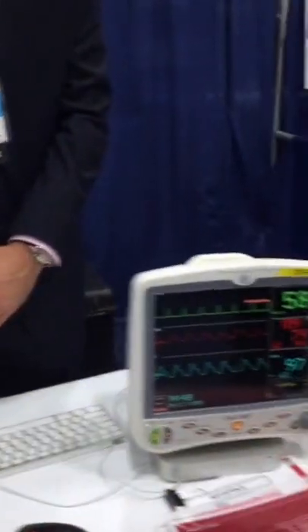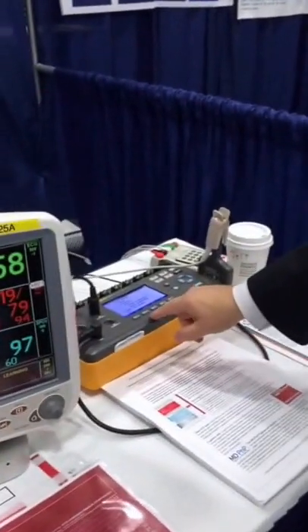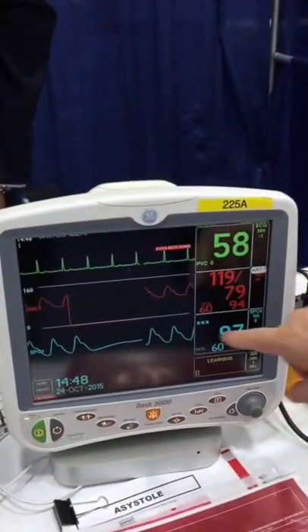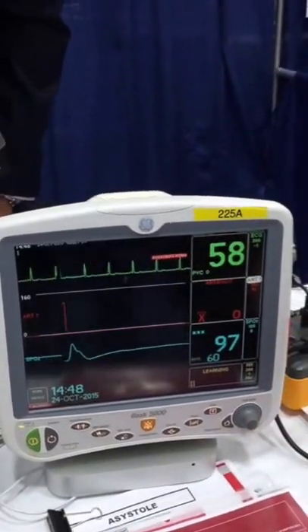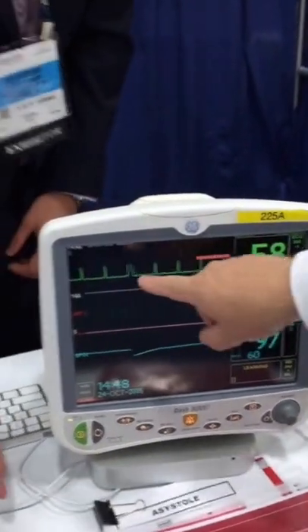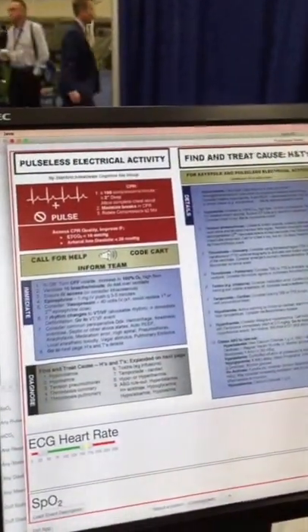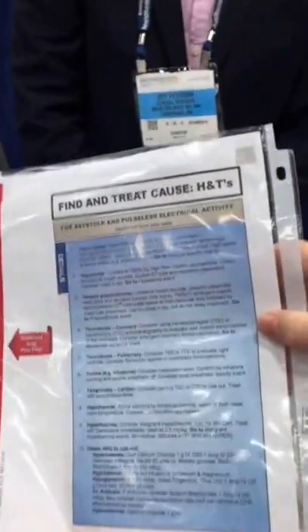So just by pressing a few buttons here we can cause that problem. If you watch the monitor you'll see that we've lost the pulsatility and now we have a low blood pressure. We lost the pulse ox waveform but the ECG continues, and if you look at this screen the app is continuously monitoring — and bingo, it just brought up the pages from the Emergency Manual that cover that topic.